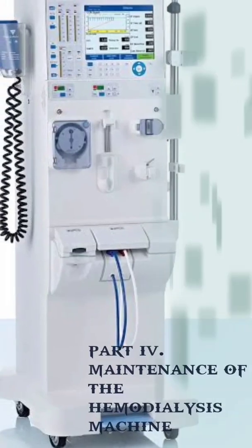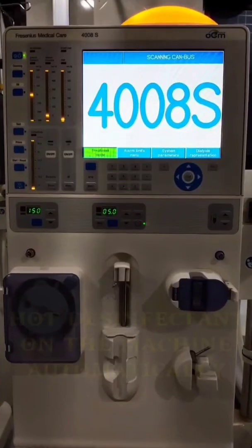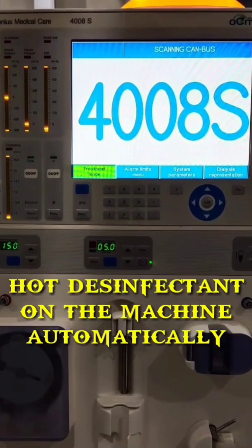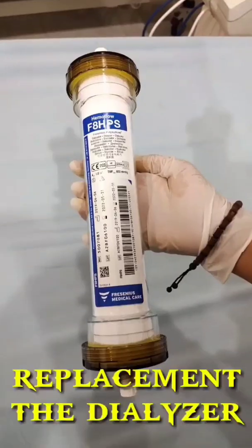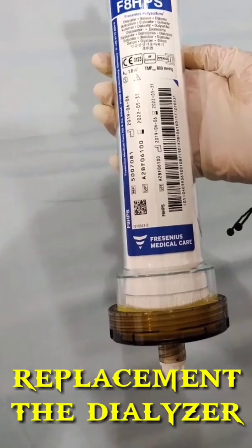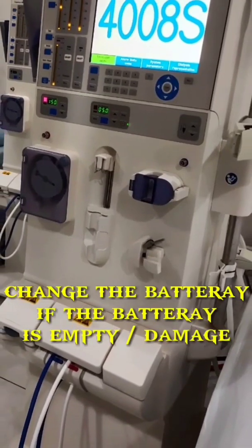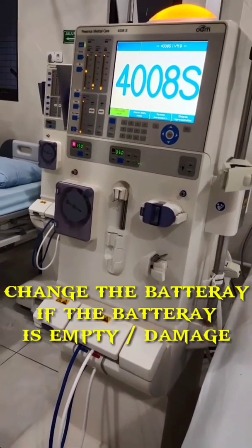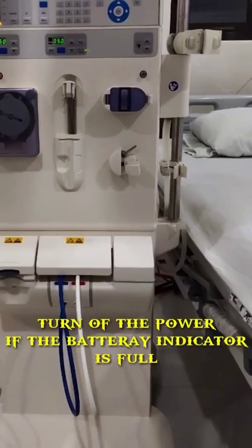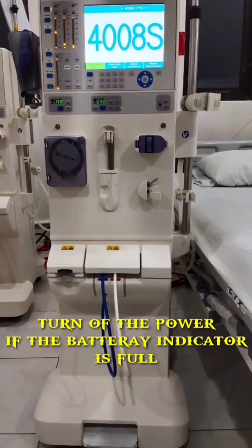The fourth discussion is about maintenance of the hemodialysis machine. Number 1, do hot disinfection on the machine automatically. Number 2, dialyzer replacement for each patient is different. Number 3, clean the blood vessel tube. Number 4, change the device battery if it is empty because it is rarely used. Number 5, turn off the power when the battery indication is full.